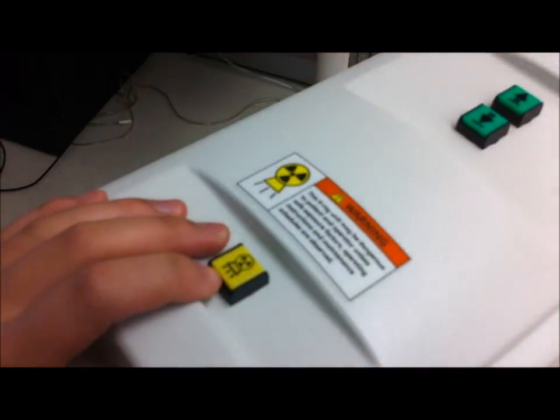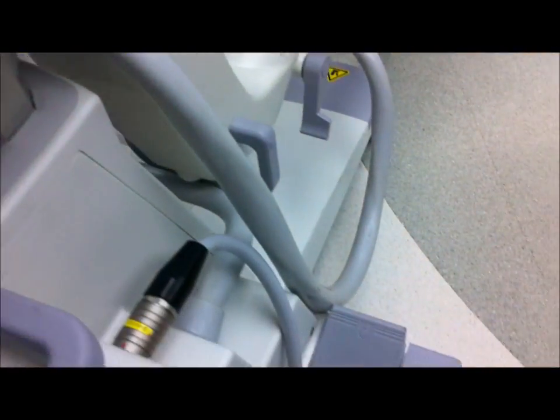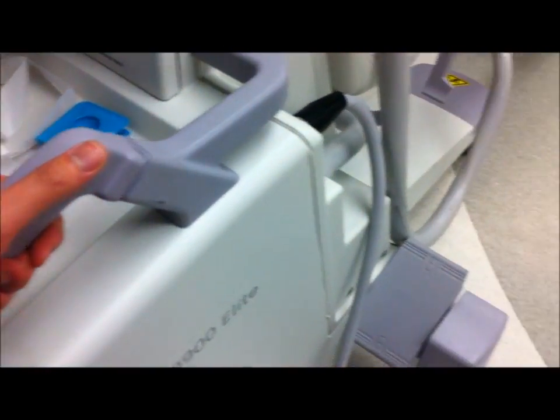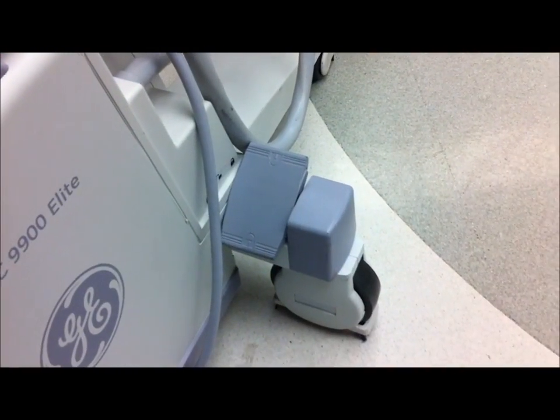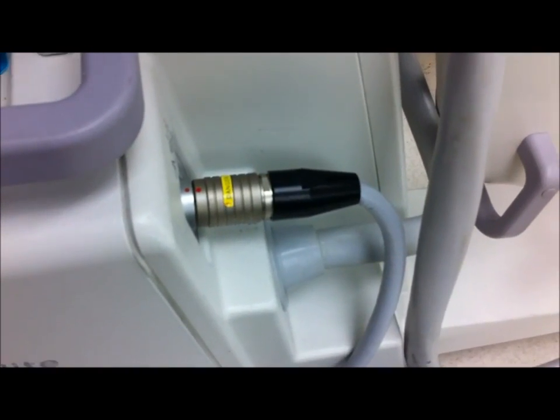Now I think I've gone through most of the controls here. This is your fluoro, this is your up and down. This is your brake for movement. This here allows either straight side-to-side movement of the wheels, or if you turn it, you can move it side to side. And this is the connector to the workstation.